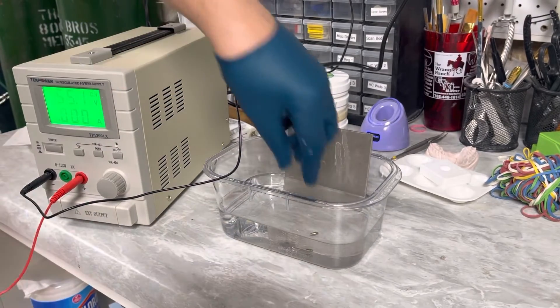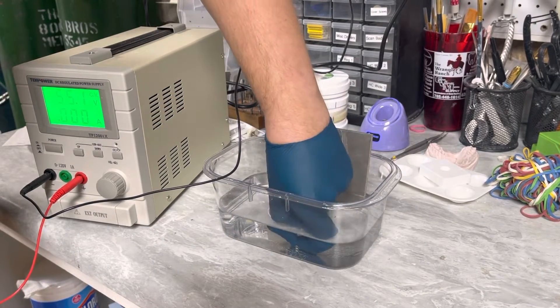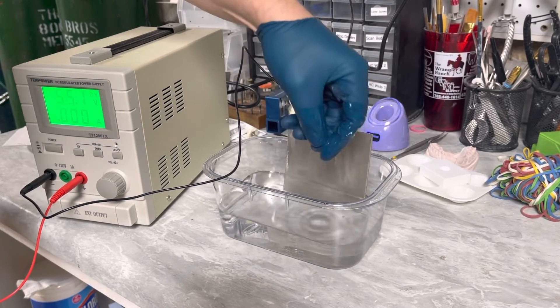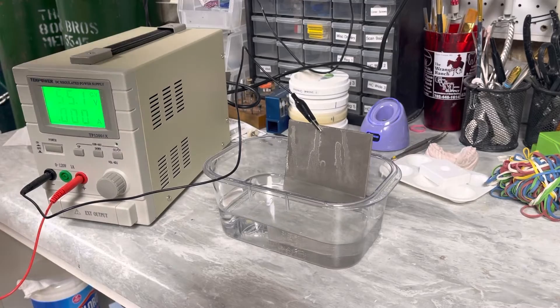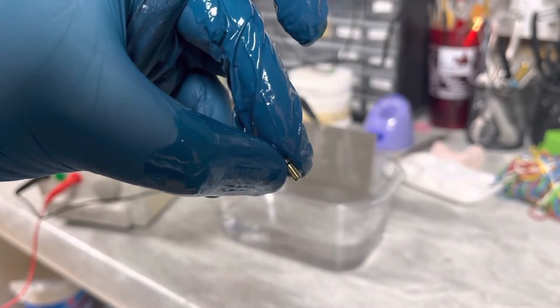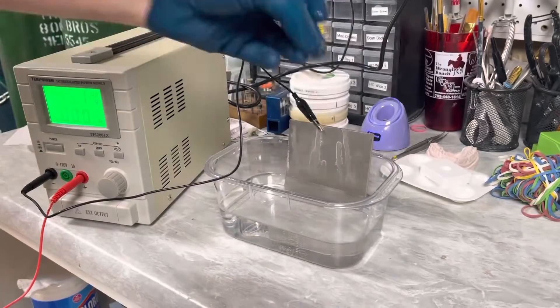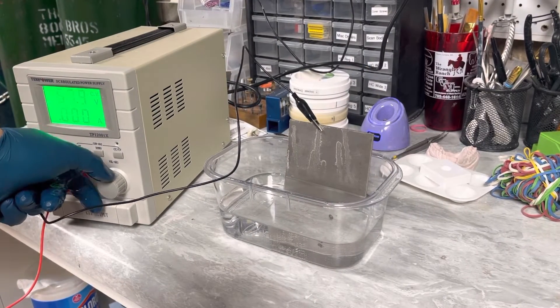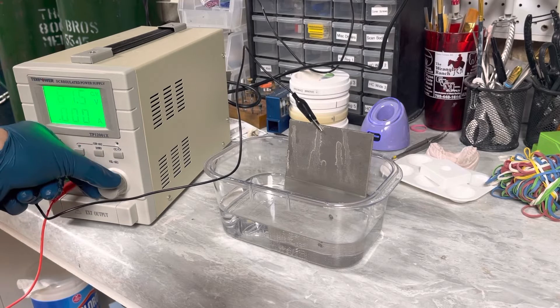There we go. So 55 is turning it more of the classic yellow. And that's another thing, depending on the shade and the hue that you want, so that turns it a very almost like light yellow, not quite gold yet. So now I'm going to turn it back up to that 64 where I was at.